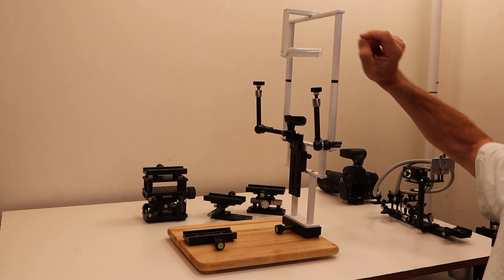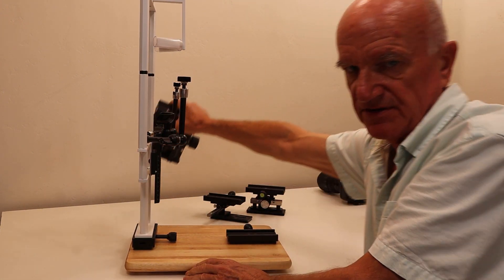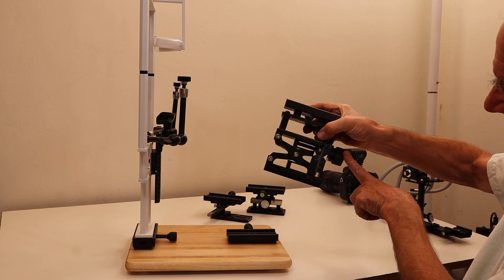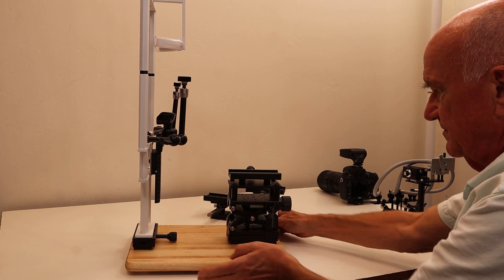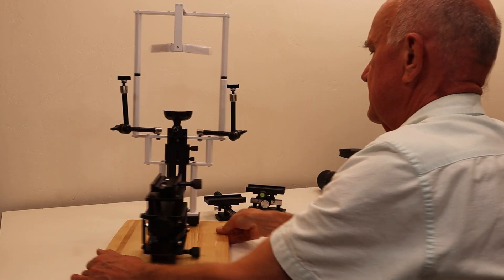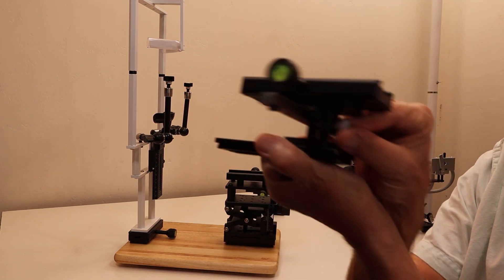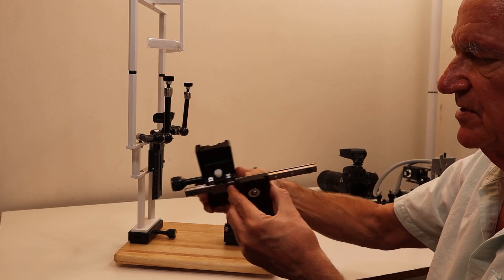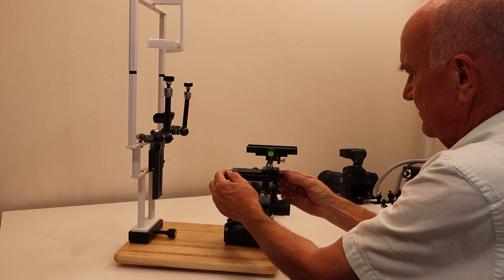The second part is the camera positioner. First, use the height adjuster - slide it in so the knob faces the operator, get that flush on both sides, and then tighten this knob. The middle level is the lateral slider with a small white tension adjuster knob that controls how easily it slides. It also faces the camera operator and fits into the dovetail track.